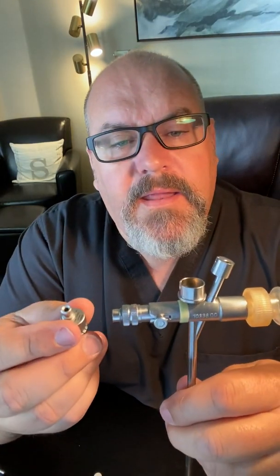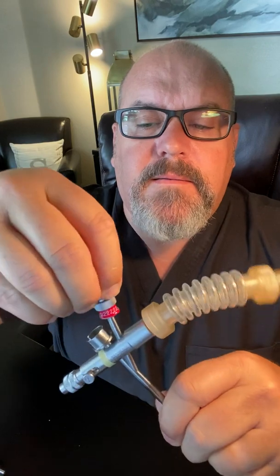You're going to want to put on an instrument guide. When you put this on, you turn it and you'll hear it click. You want to put a gray nipple over the top of that — that'll keep the anesthesia from coming out.